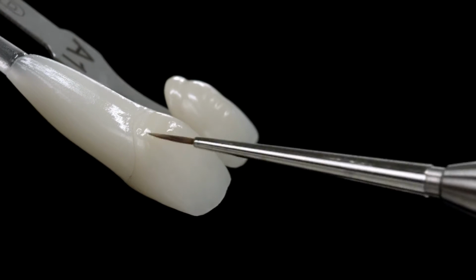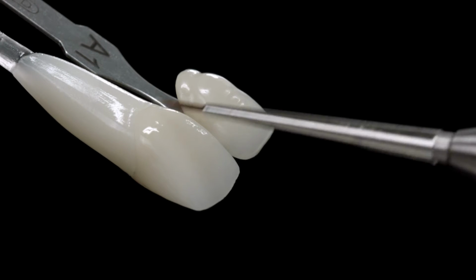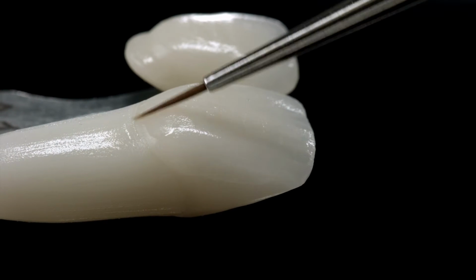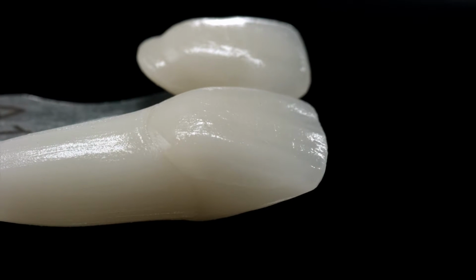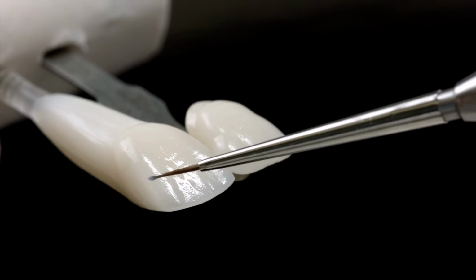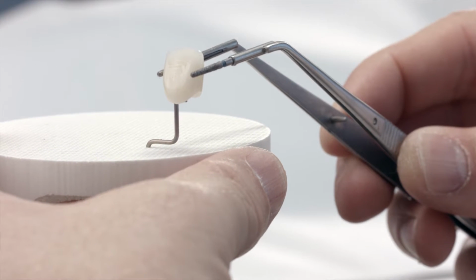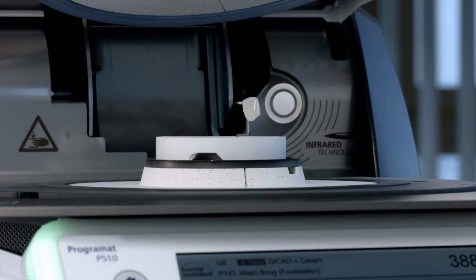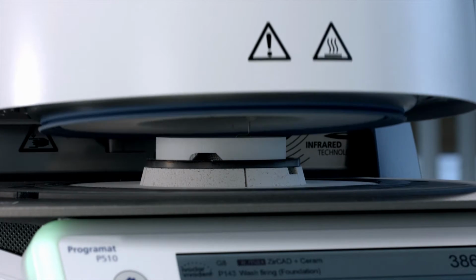Apply the shade paste in a very thin layer and compare the color intensity with the required tooth color in the shade guide. The paste consistency influences the application behavior and firing results. A thicker application leads to an inhomogeneous color effect. A more intense shade is achieved through repeated staining and firing, not by applying a thick layer. Now carry out the stain bake.